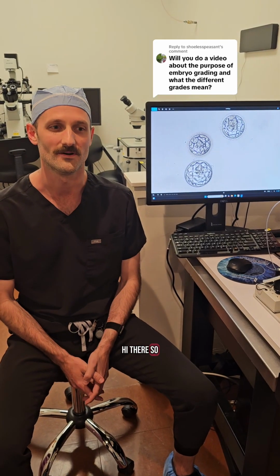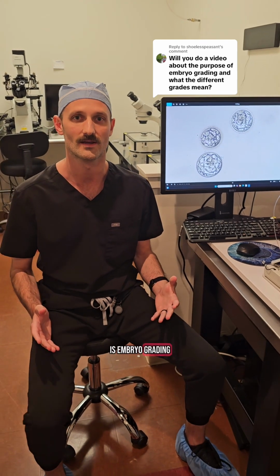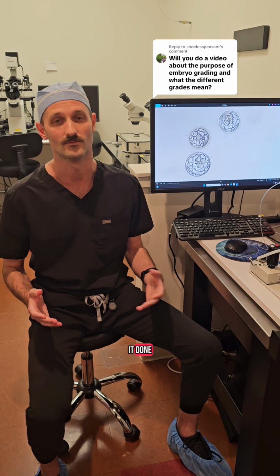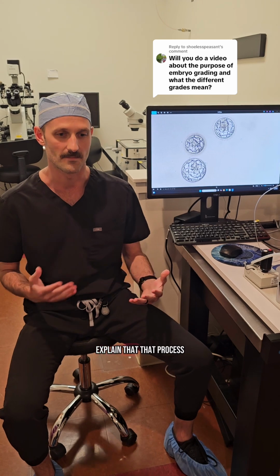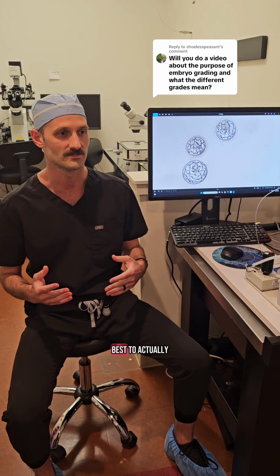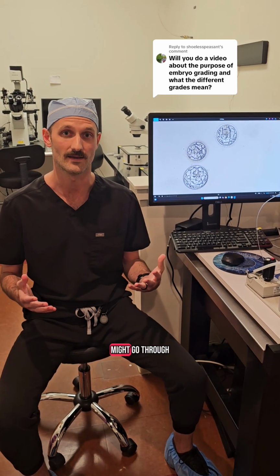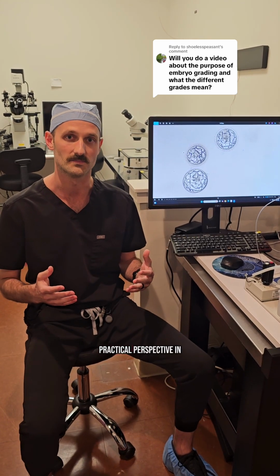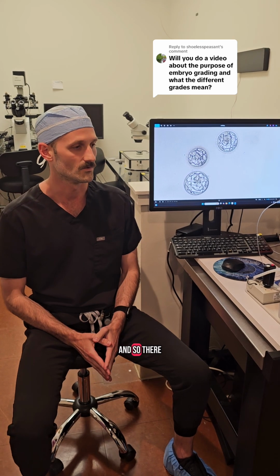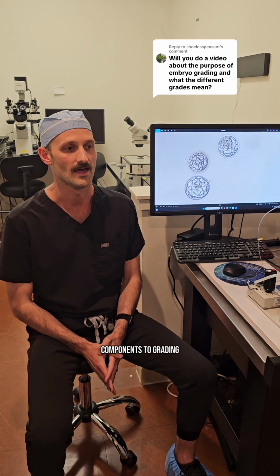Hi there. A frequent question that we receive in the lab from patients is what is embryo grading, how is it done, and what does that mean for my embryos? For me to explain that process, I find it best to actually show some real life embryos and walk you through how I might go through the grading process and what that means from a practical perspective in the lab. There are three important components to grading every embryo.